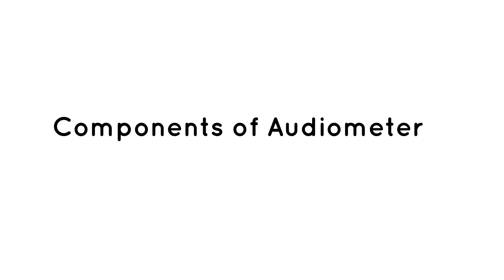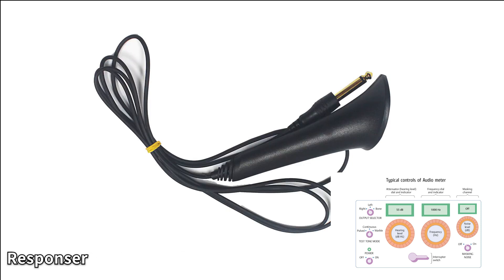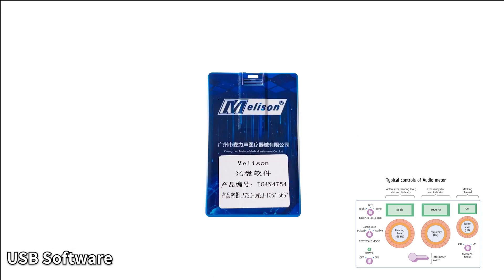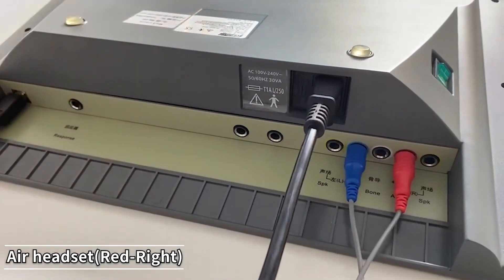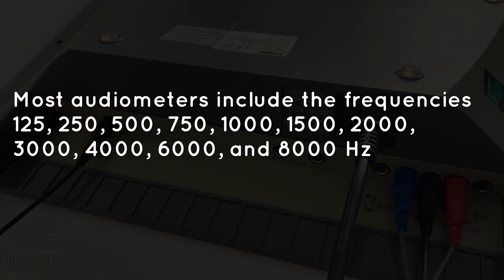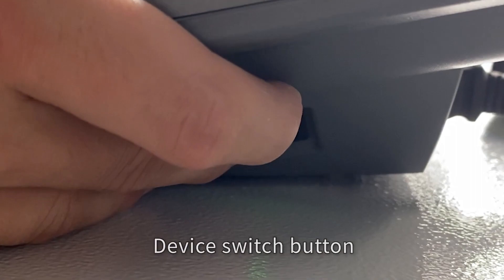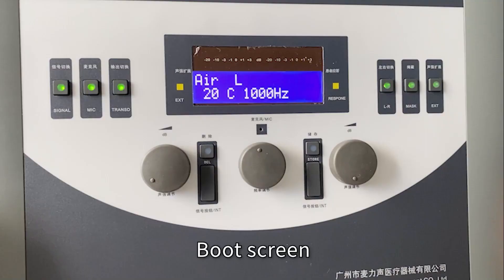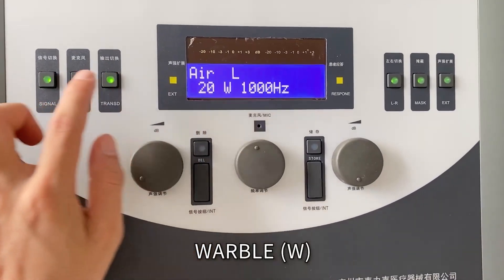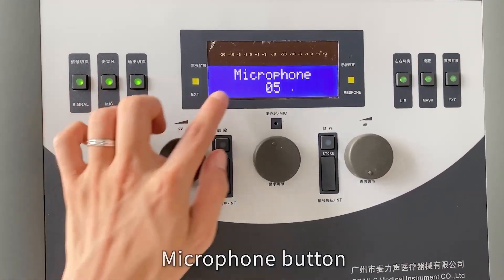Let's look into the components of the audiometer. The power switch controls the electrical supply to the instrument, and there is often a power indicator lamp to show whether it is on or off. Test tones are presented to the patient by turning them on and off with a button called the interrupter. The frequency control is used to select among the various test frequencies. Most audiometers include the frequencies 125, 250, 500, 750, 1000, 1500, 2000, 3000, 4000, 6000, and 8000 hertz. The pure tones are produced by a circuit called a pure tone oscillator. There is a stimulus or tone mode switch that allows the test tone to be presented either continuously or pulsed on and off at a regular rate. Another mode produces a warble tone, which means the frequency varies periodically rather than staying steady over time. This feature is not commonly found in basic audiometers.